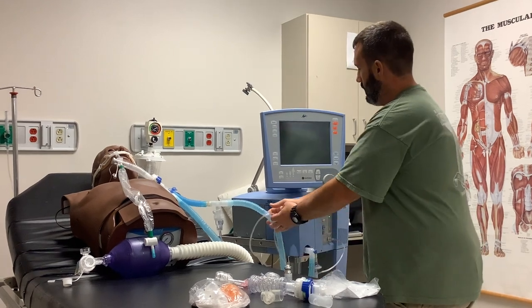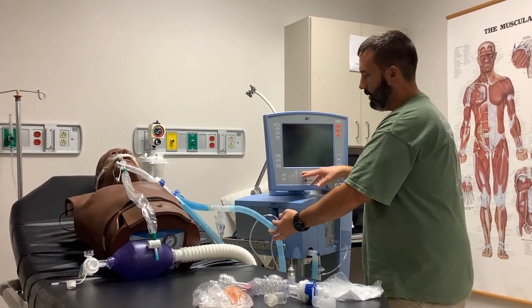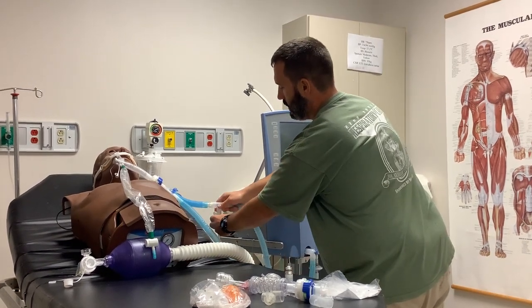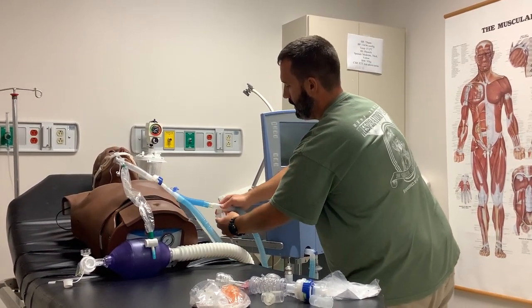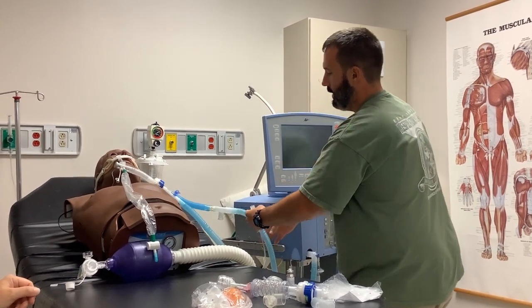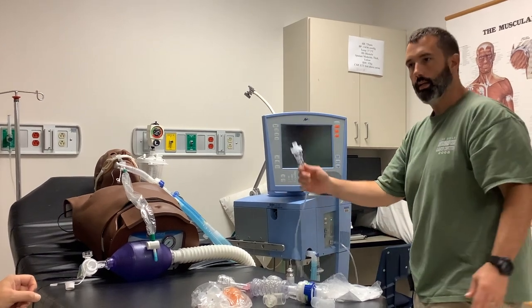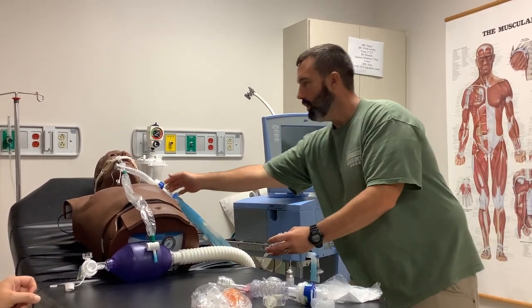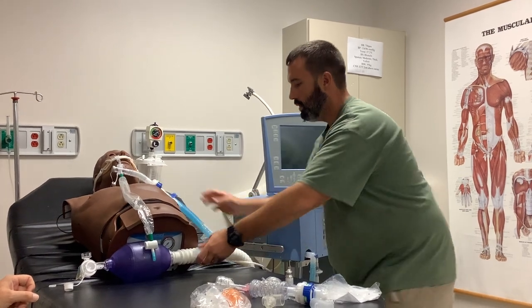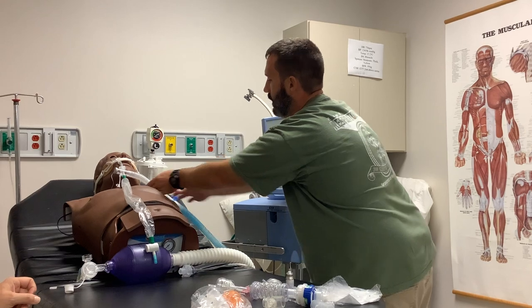After you're finished, the green LED light by the nebulizer will go off. Then you come in, disconnect, and cap that back. The spring-loaded valve seats down so you don't have any volume lost, and you can leave the NEB-T in - that way you're just putting your NEB cup in and out. Make sure after you're done you switch that back over to HME. And that's it.